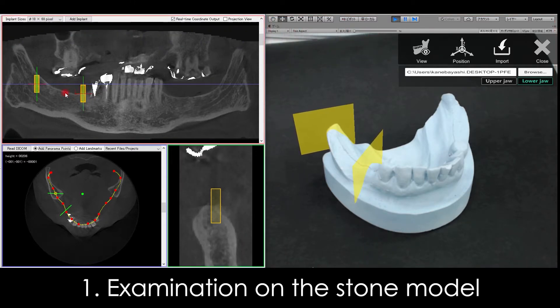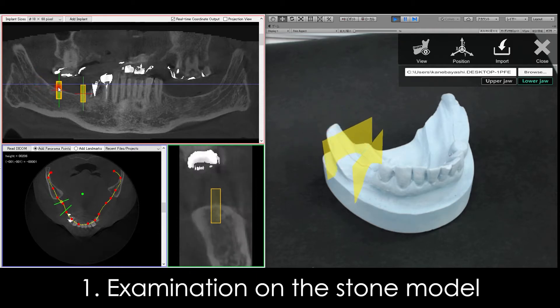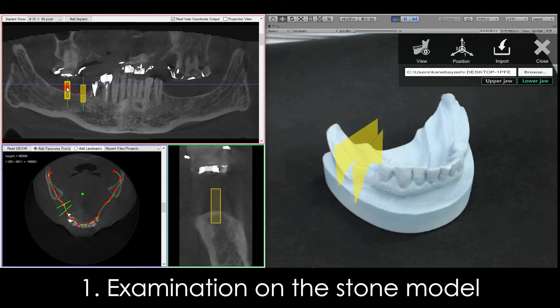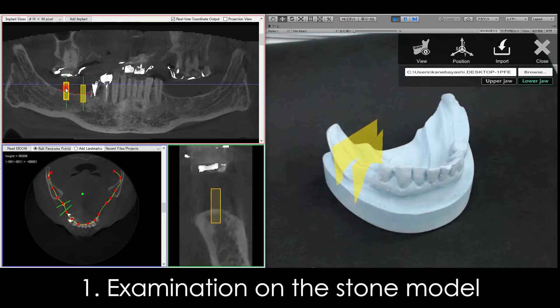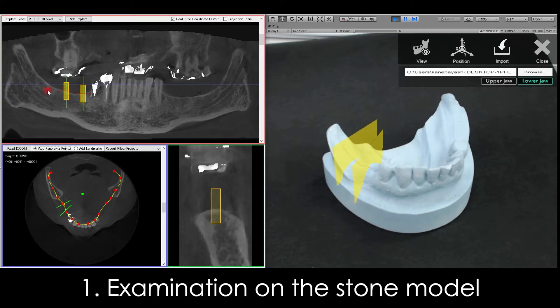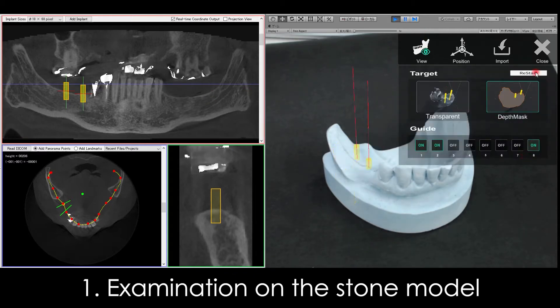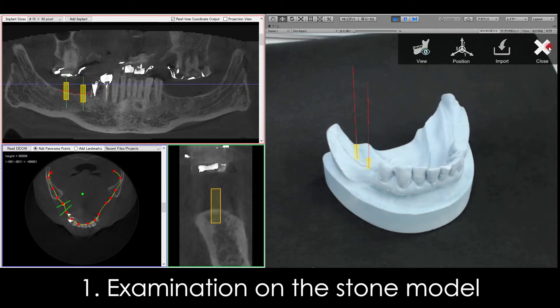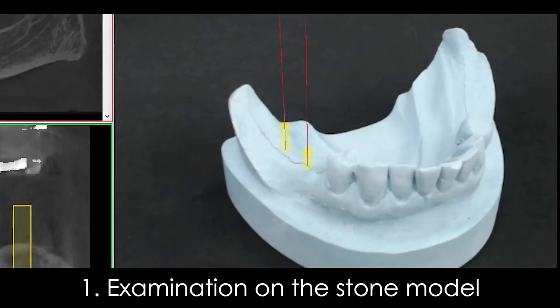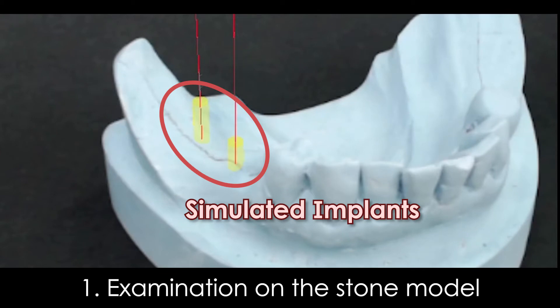The translucent board-shaped 3D object on the stone model can move in conjunction with the implant on the simulation software. The 3D objects indicate the placement positions of the simulated implants.